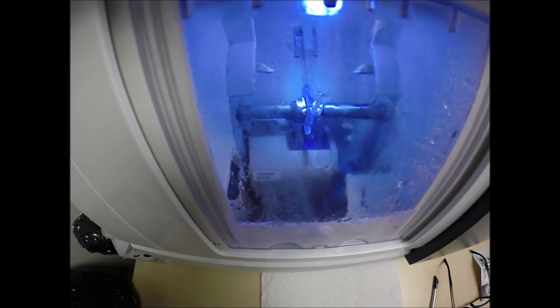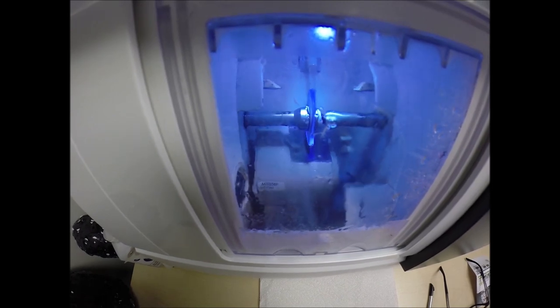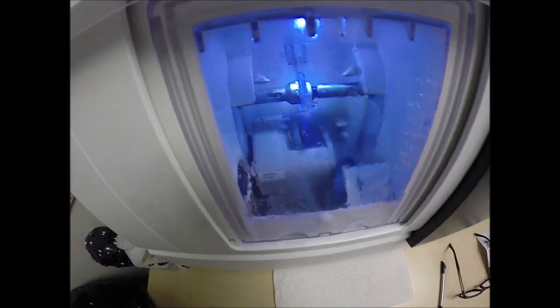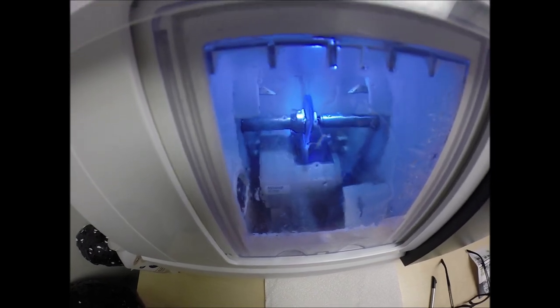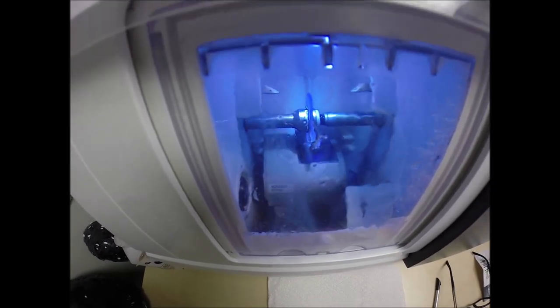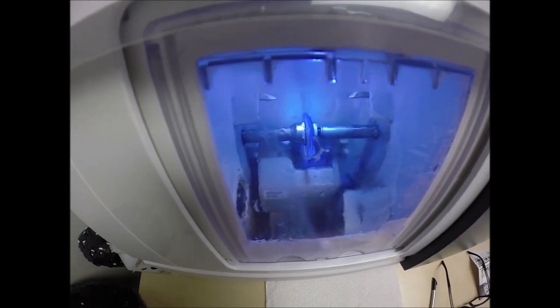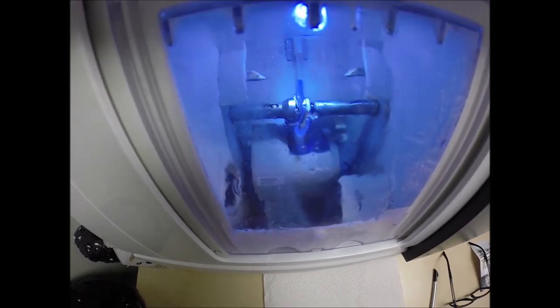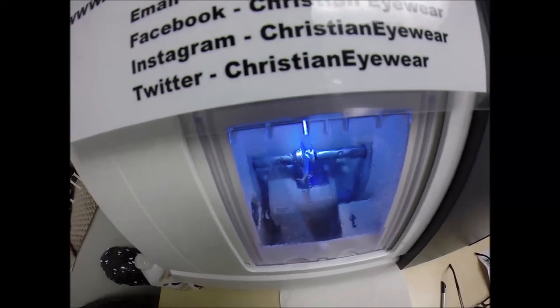A little lever has come out — at the end of that lever is a spinning disc, the fine-grade disc that's applying the safety bevel. The third feature of the anti-glare, which is the practical side, is it comes with the industry's hardest scratch coating. The machine that applies the anti-glare coating costs well over a million dollars. It takes over 24 hours to vaporize eight different coatings onto your lens. So because of the time and expense, they put the industry's hardest scratch coating on there to protect your time and investment. It's getting the safety bevel on the back of the lens. In just a moment, we'll see if the lens fits first time around or if we'll have to take it down at all.